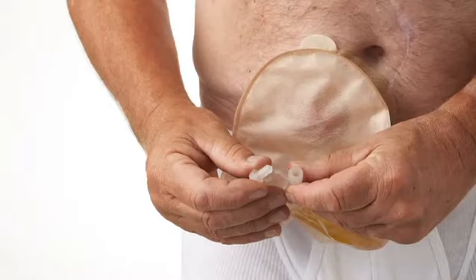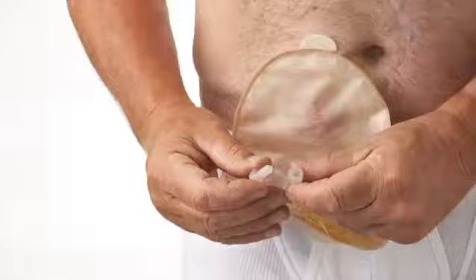Before emptying the bag, cough a few times to empty the stoma. You will need some toilet paper for cleaning the outlet.